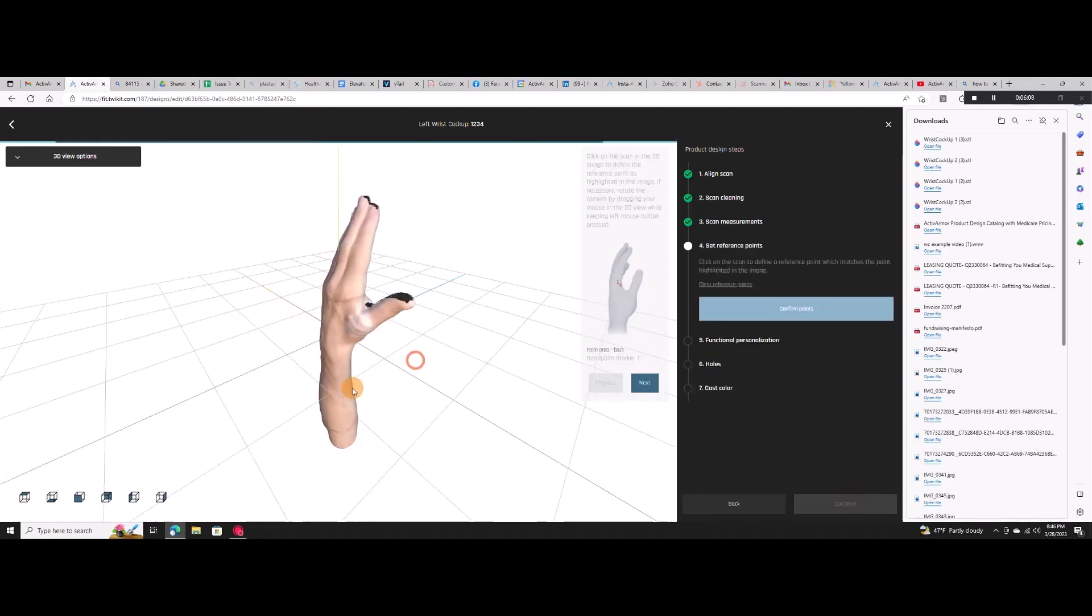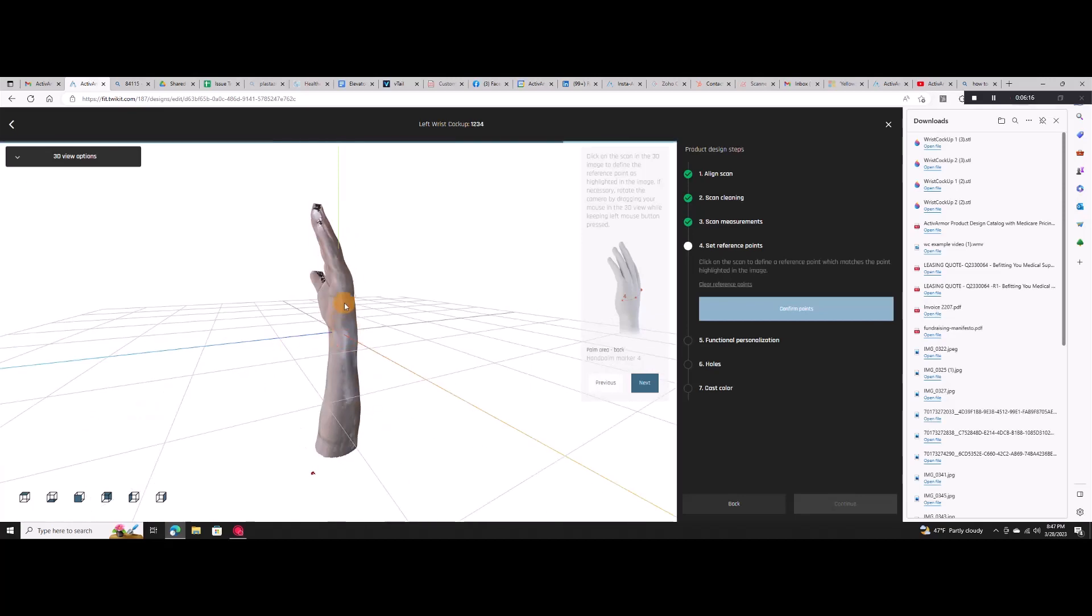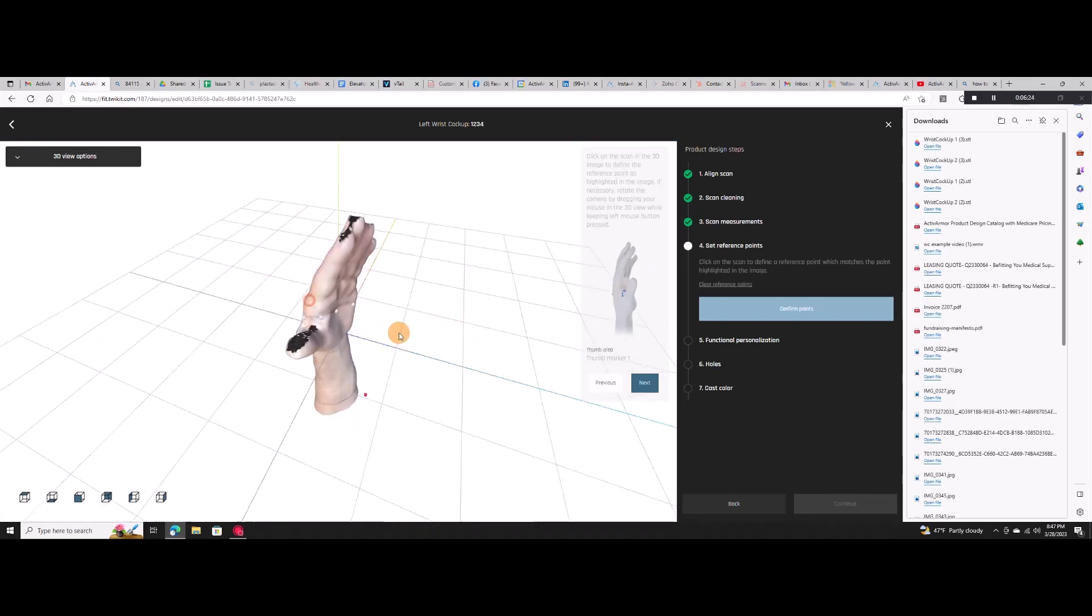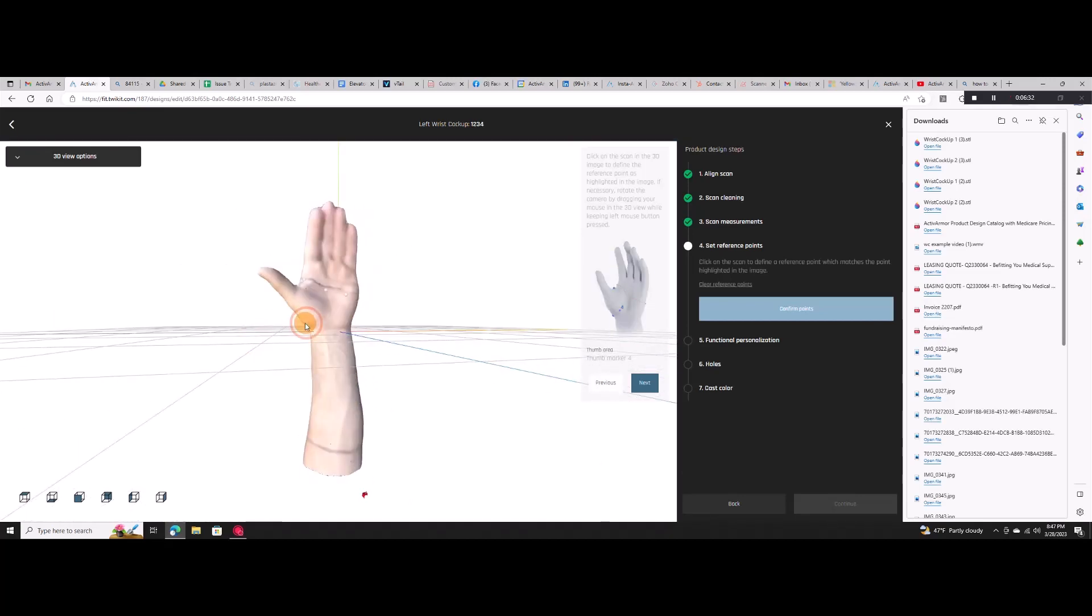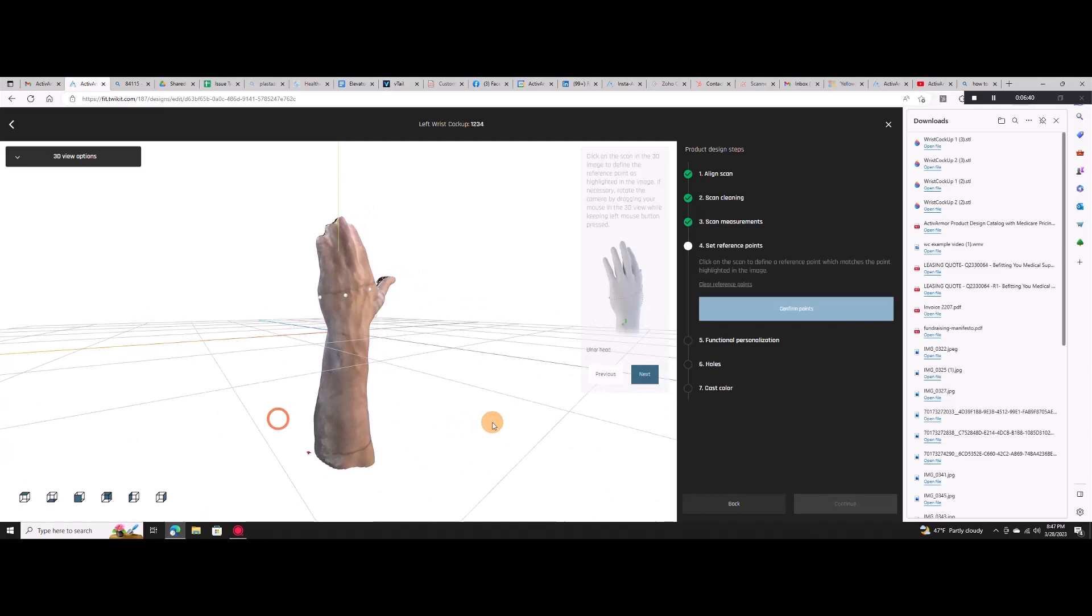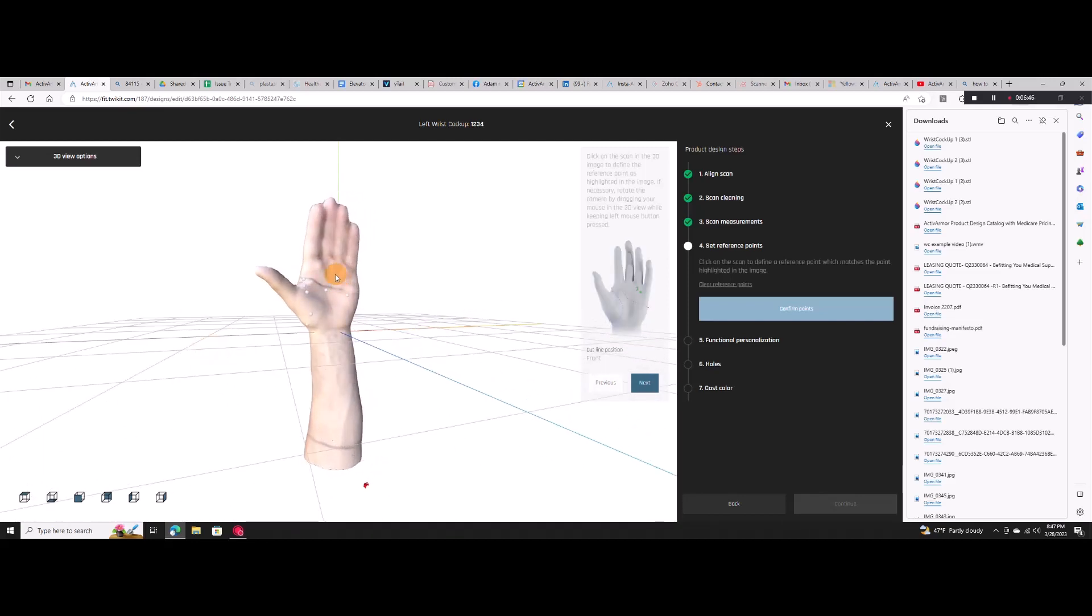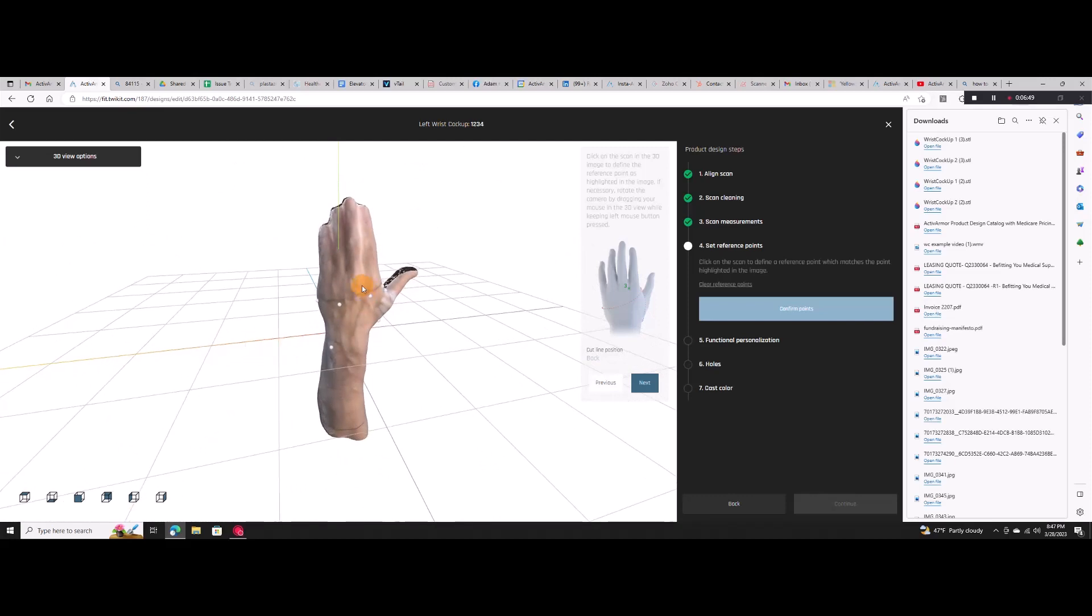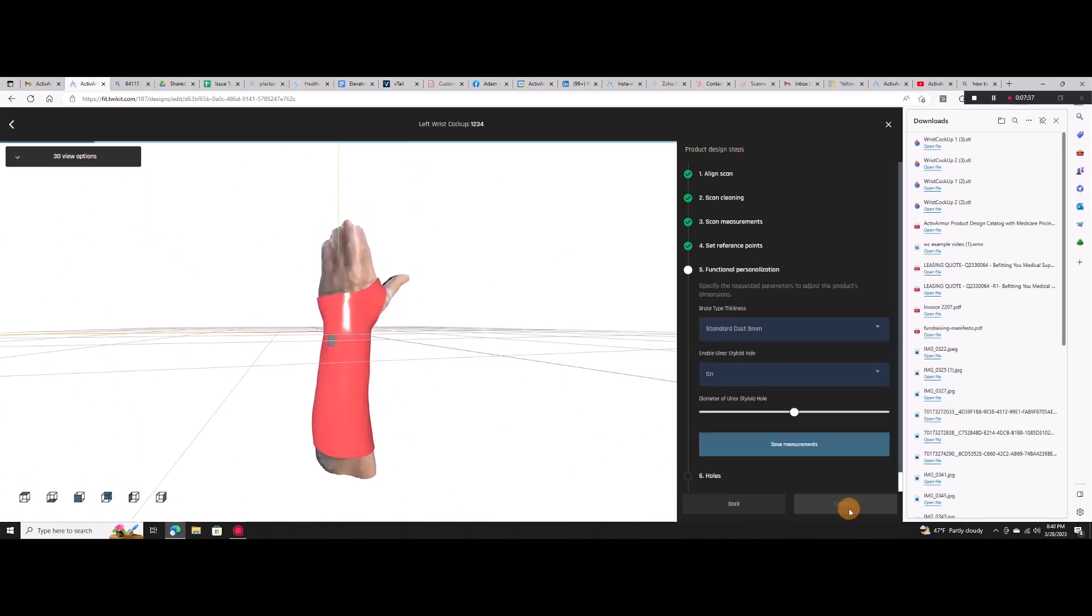Follow the pictorial guide to select the custom cut lines you want in the palm and around the thumb. Select the ulnar styloid. Select the seam line positions and the length of the cast. A model will be displayed showing the coverage area you have chosen.